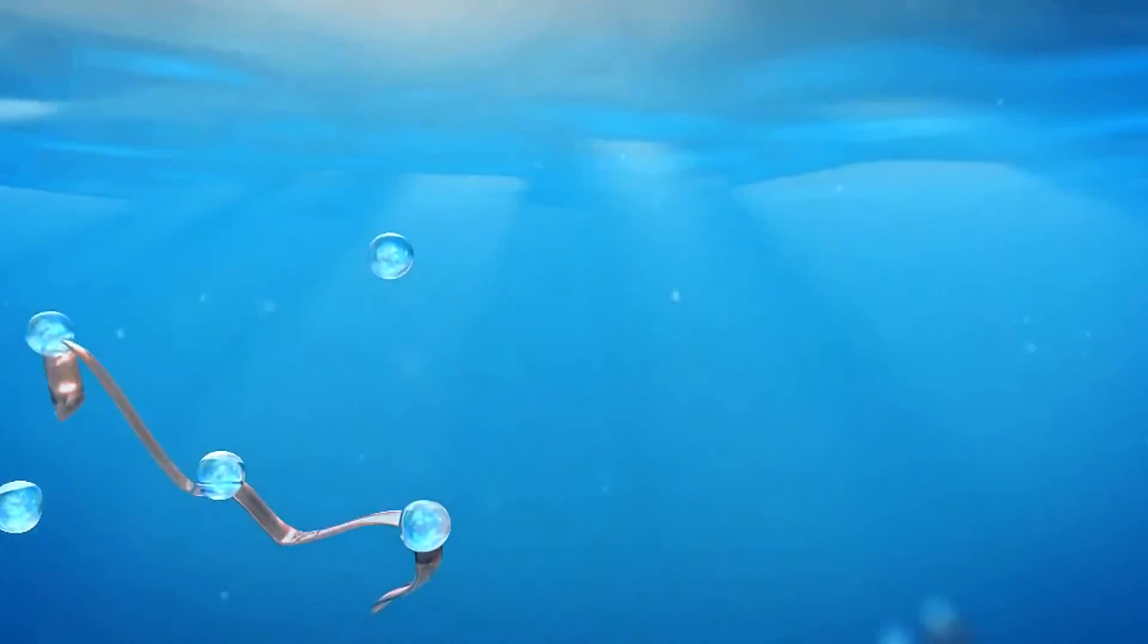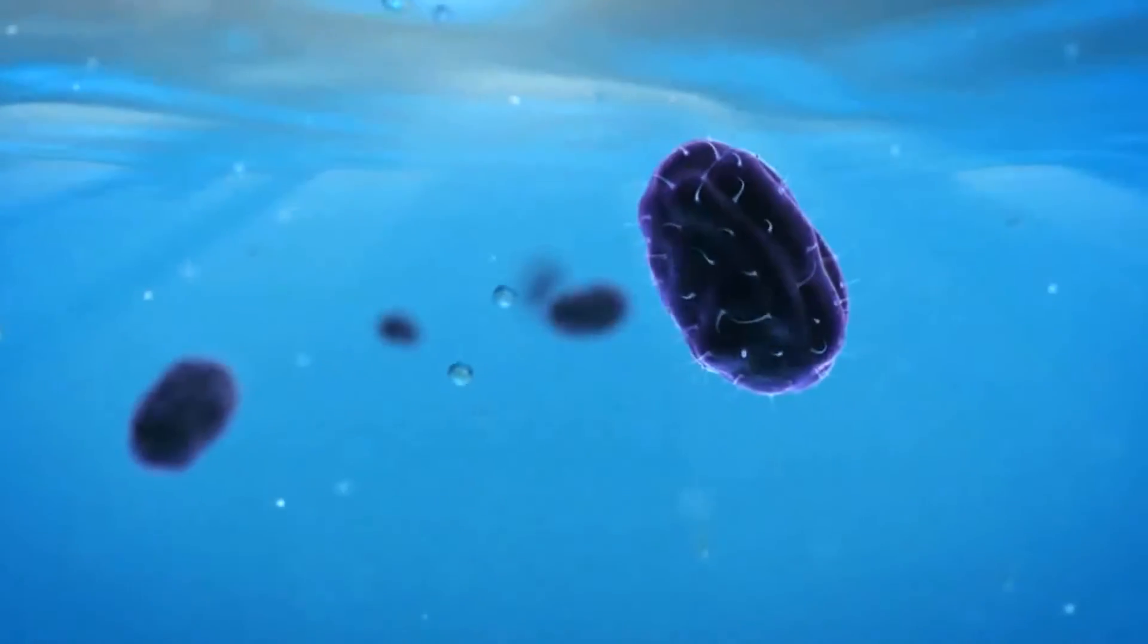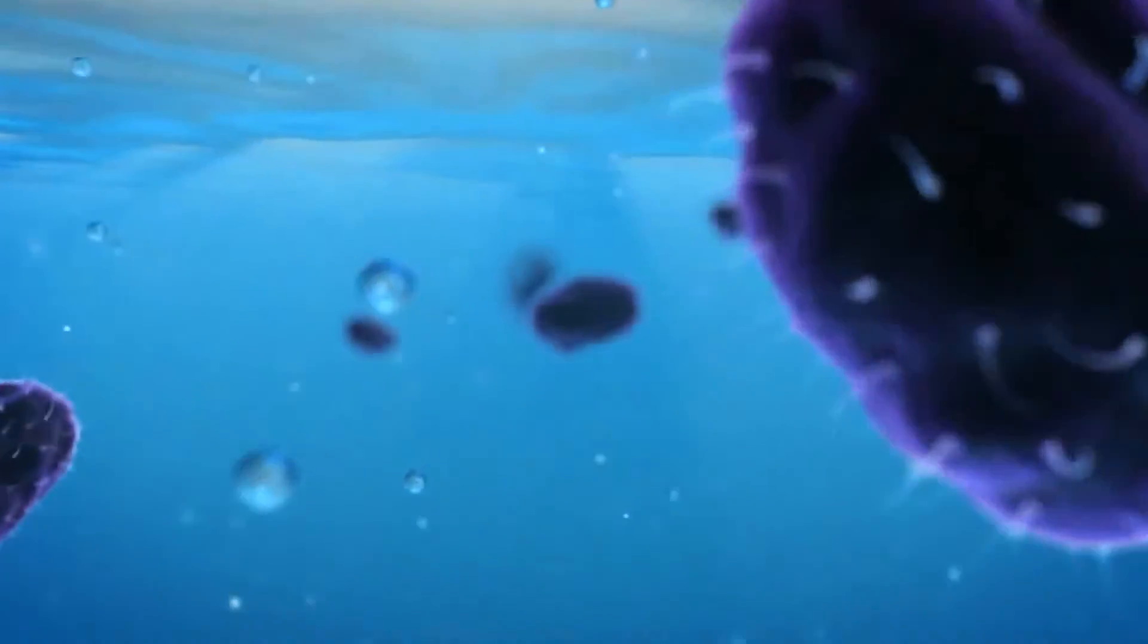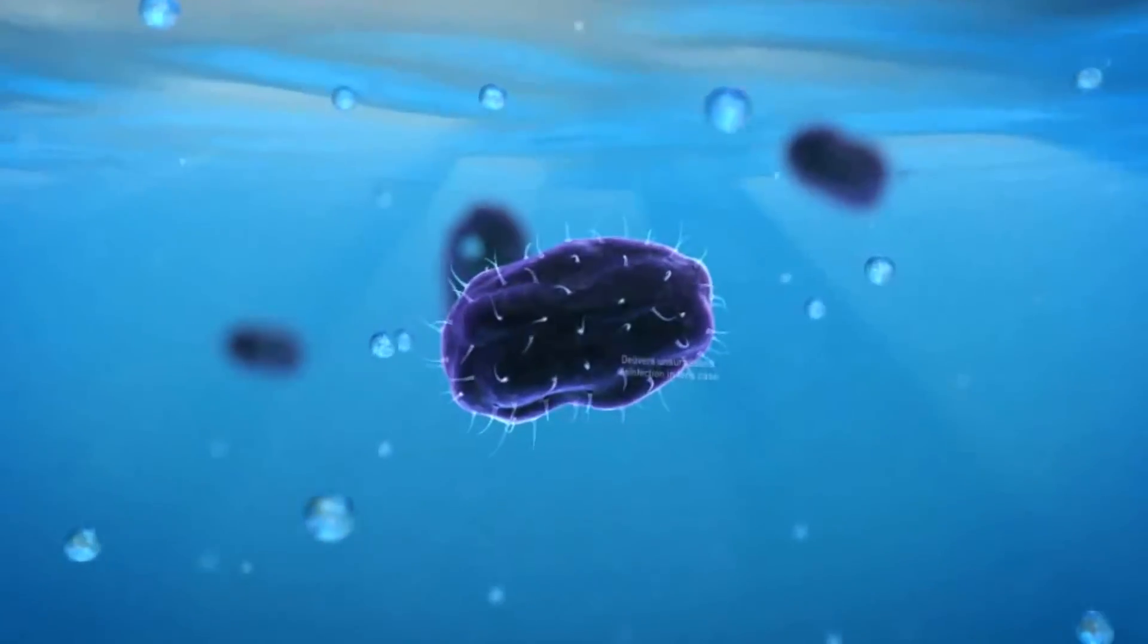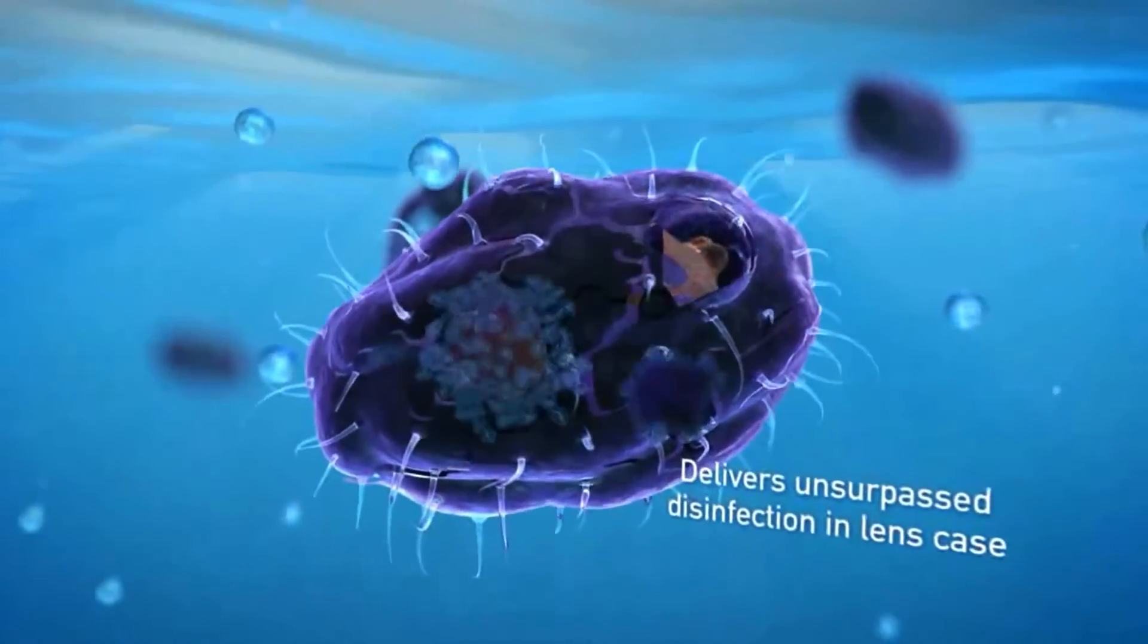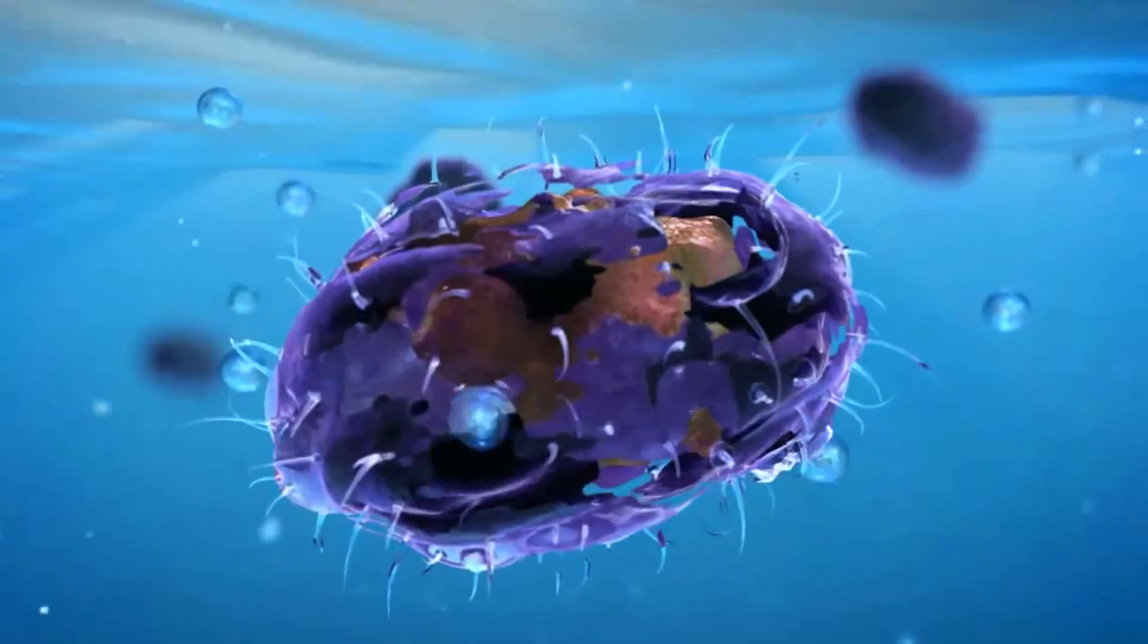that may develop on the lens surface, keeping lenses clean and clear. During disinfection in the lens case, the unique innovations of BioTrue work together with a dual disinfection system, delivering an unsurpassed level of efficacy.